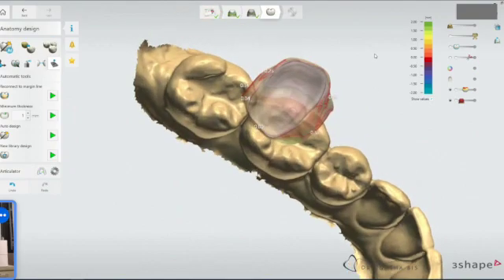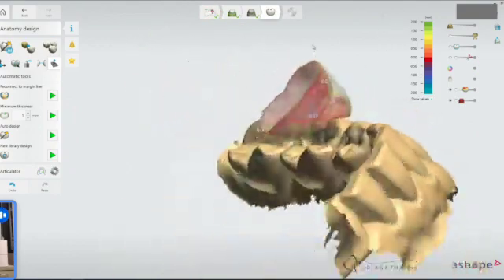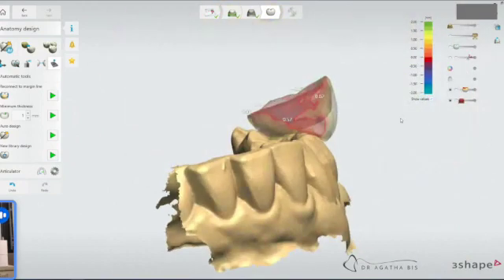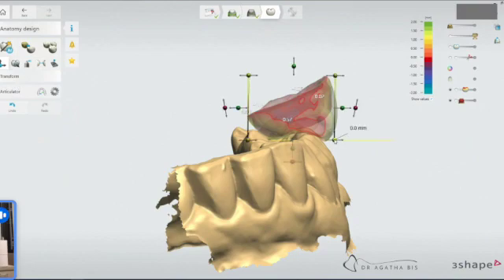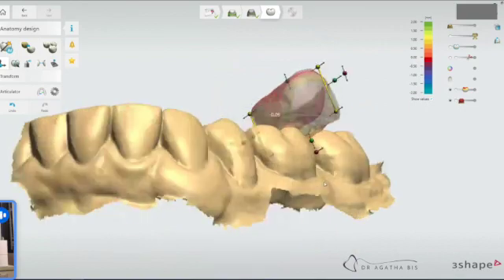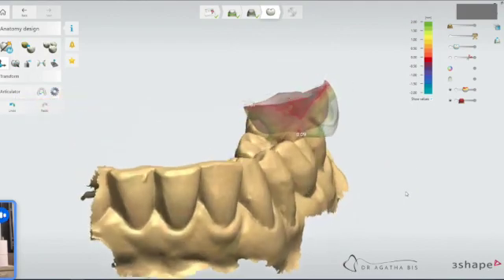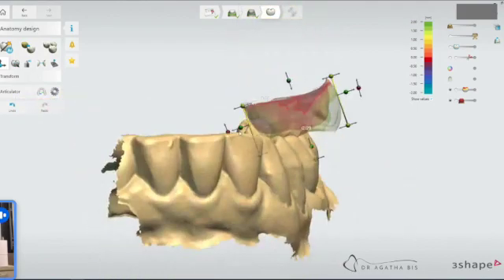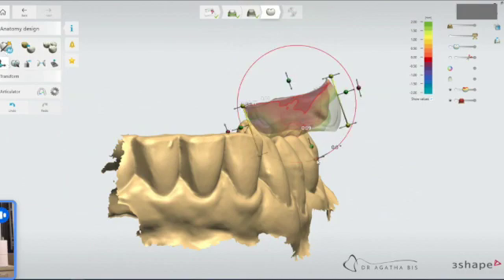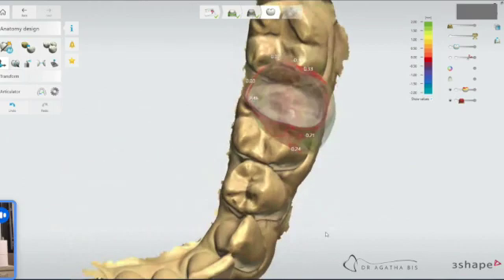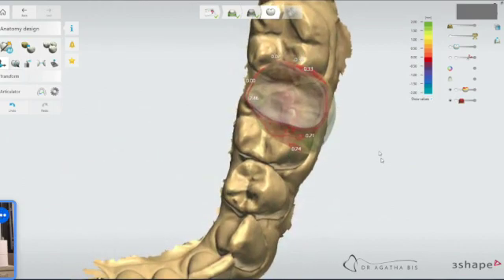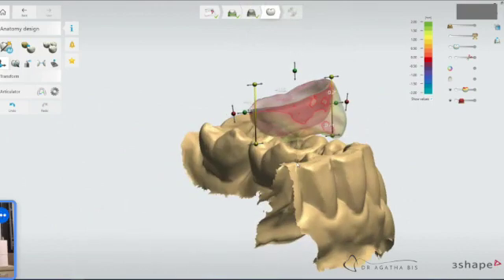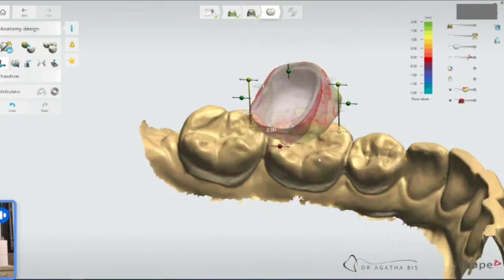So now we've got a contact. If, for example, the software didn't do it, let's say it had it positioned differently. I'm just going to reset it for a second. Let's say they did it like this. And now you've got this cusp of the opposing sort of where it's not supposed to be. So then what we do is we simply use the transform tool and then you rotate so that we've got that cusp in ideal position where we want it.